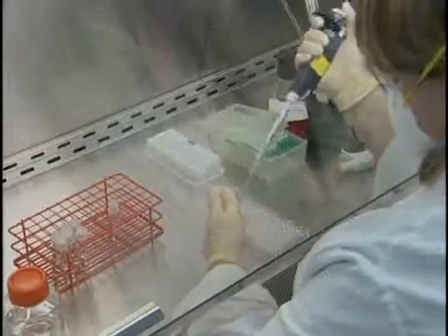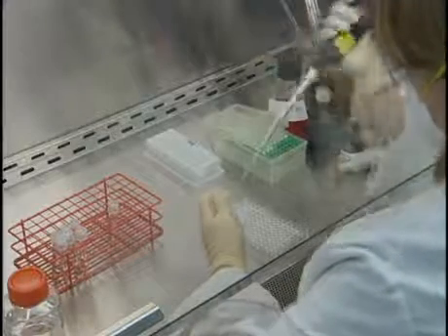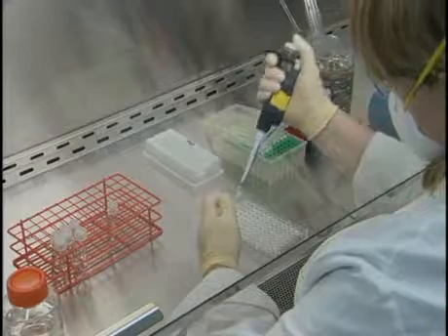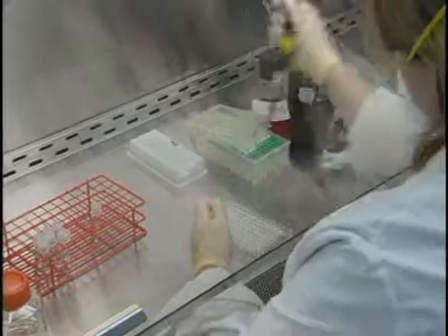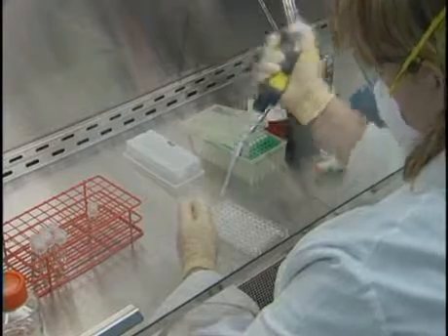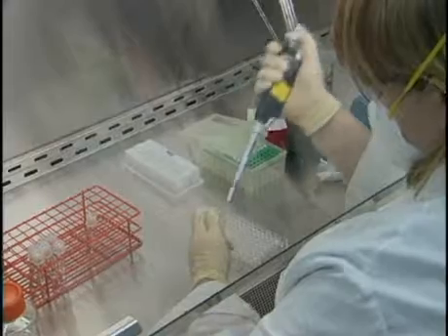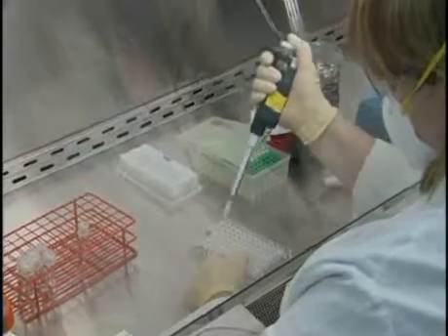Add 25 microliters of the standardized antiserum to the first well of each row. The standardized antiserum has been previously absorbed with erythrocytes to remove the natural agglutinants present in some serums. The antiserum is also diluted to achieve an endpoint titer of 1 to 32 or 1 to 64 with homologous antigen.